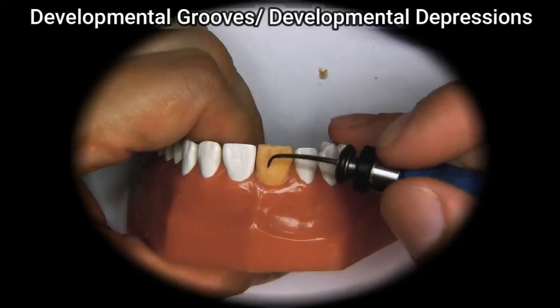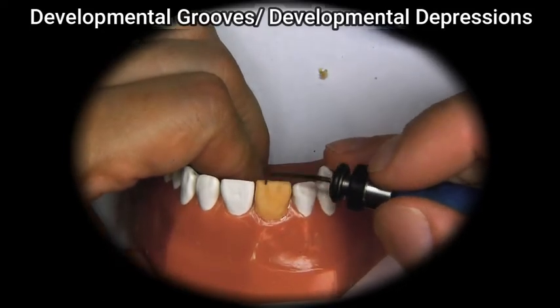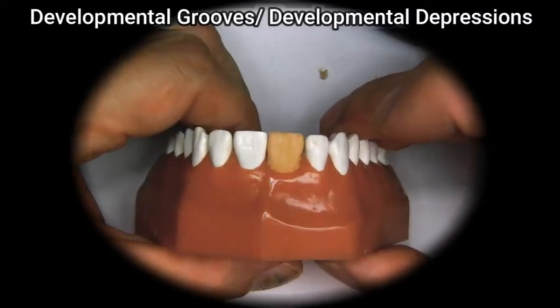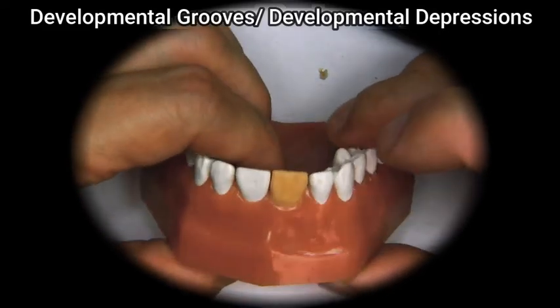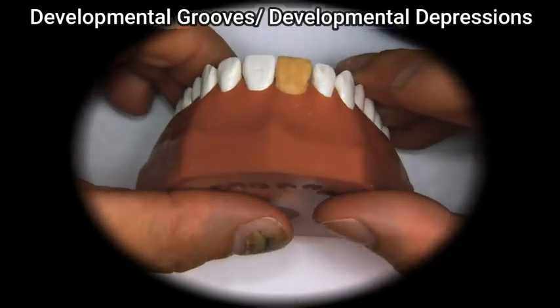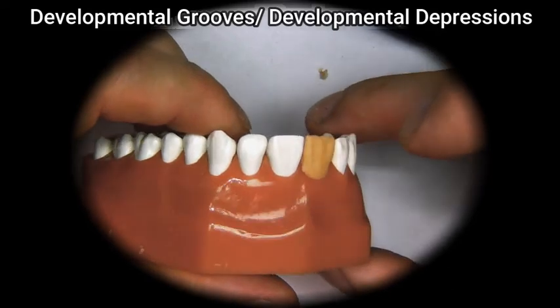They are basically depressions that create visual irregularities on the tooth. So if you see, I blended them together now, and you can't really see it unless you look at it from the side.